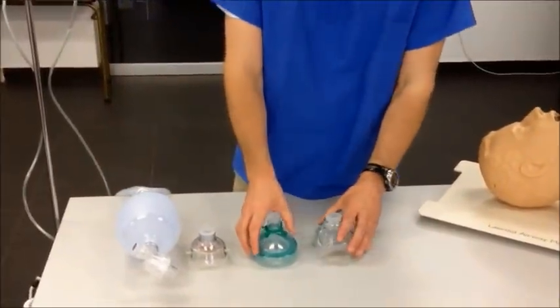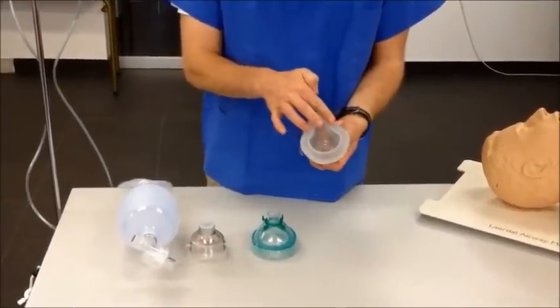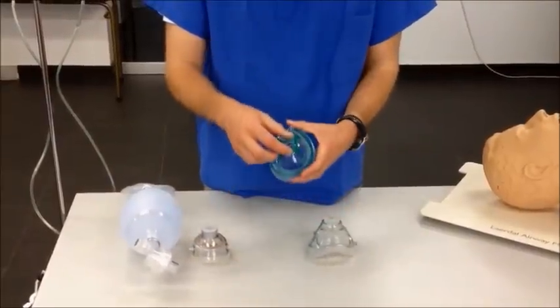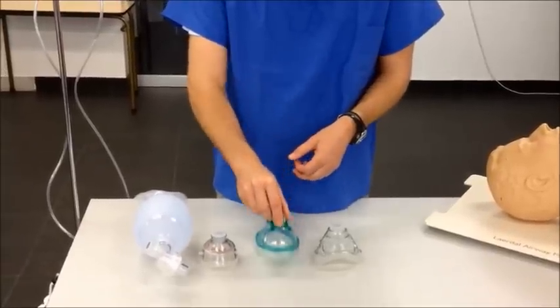There are many different kinds of face masks. An example would be one like this with a hard plastic chassis, which is lined with soft silicon to give a seal to the face. An alternative design is a hard plastic chassis mated to an inflatable cuff, which can seat to the face in a dynamic way conforming to the contours.